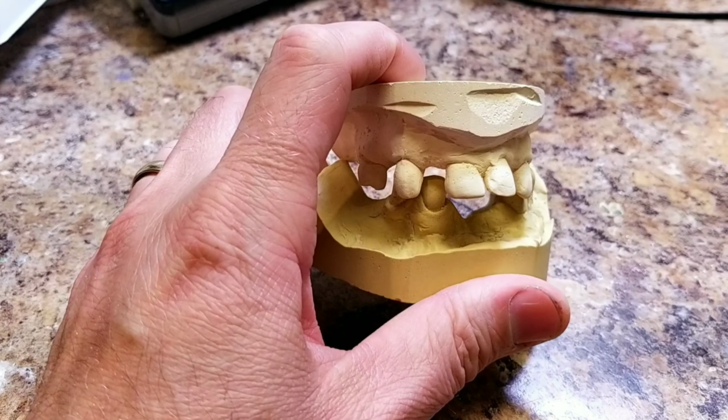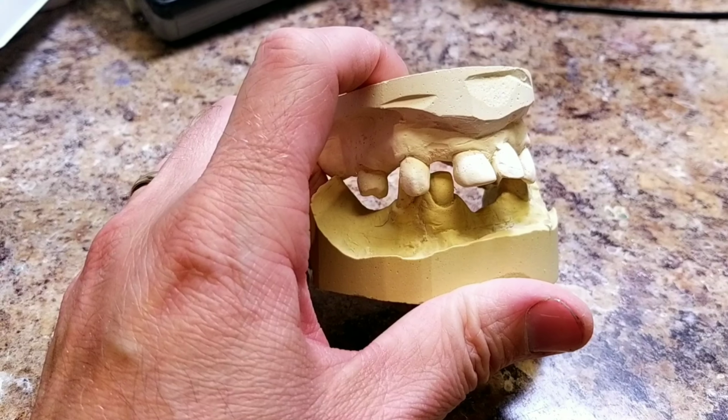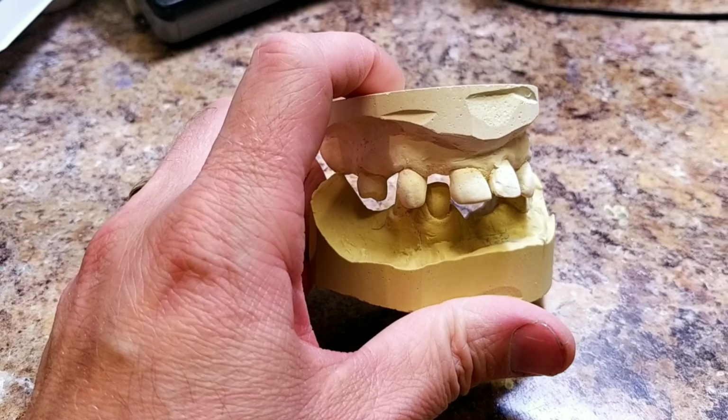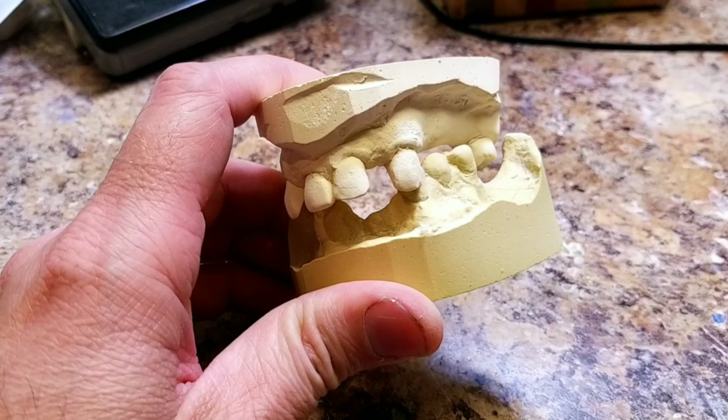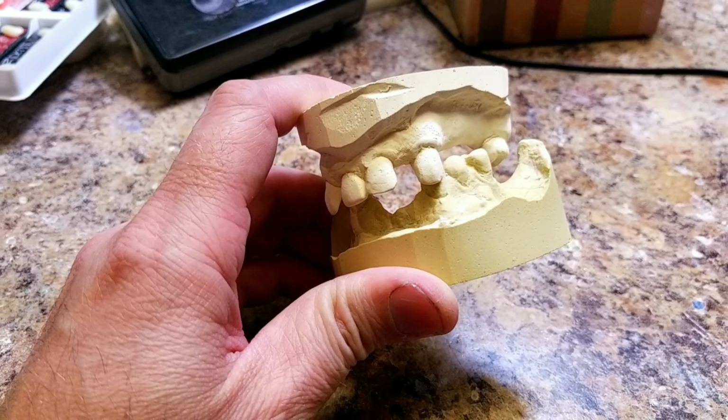My dad always taught me the hardest thing about setting teeth is sometimes you just don't have space and you have to make it happen. And that's exactly what he taught me, is you have to make it happen. Once that's part of your mindset, the rest is easy.